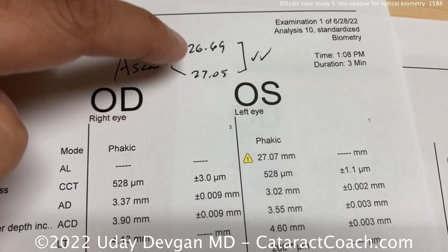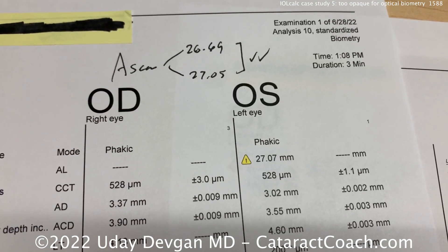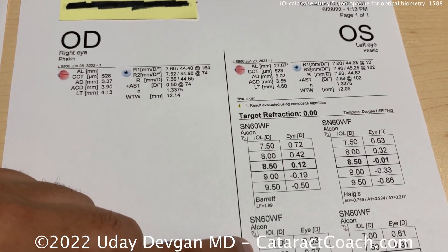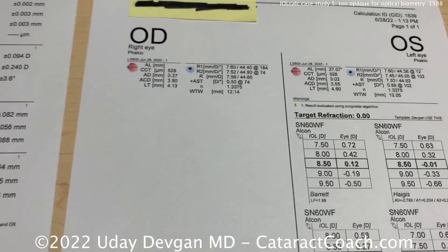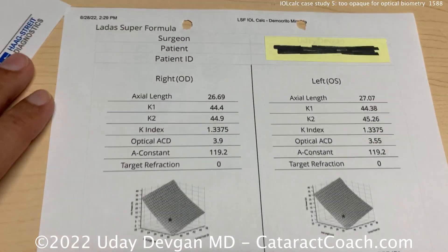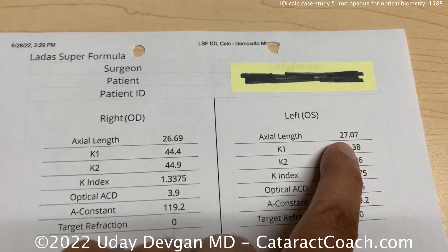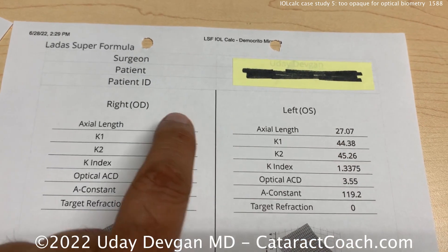About 0.3 millimeters difference in axial length is close to a diopter of difference. So maybe the left eye is about a diopter more myopic than the right. Let's look at the lens calculations. I use those axial lengths — that's the axial length from the A-scan ultrasound, and this one from the optical measurement.